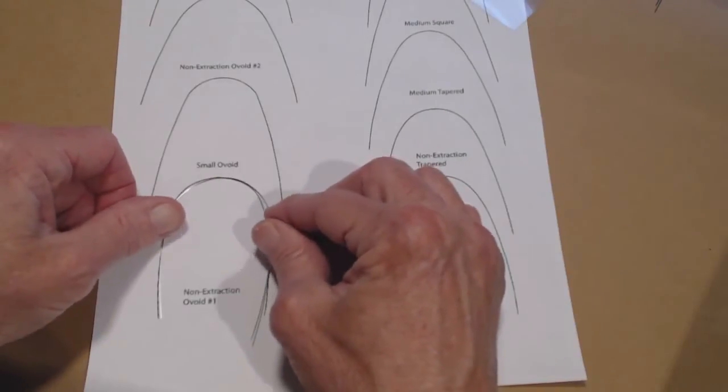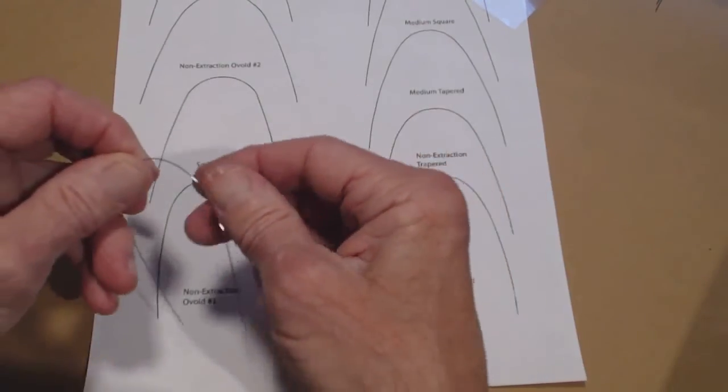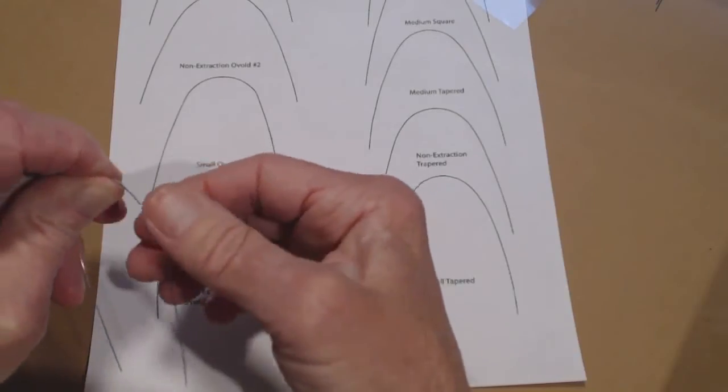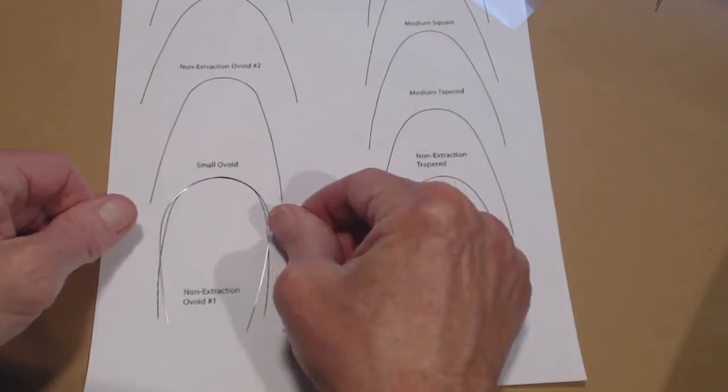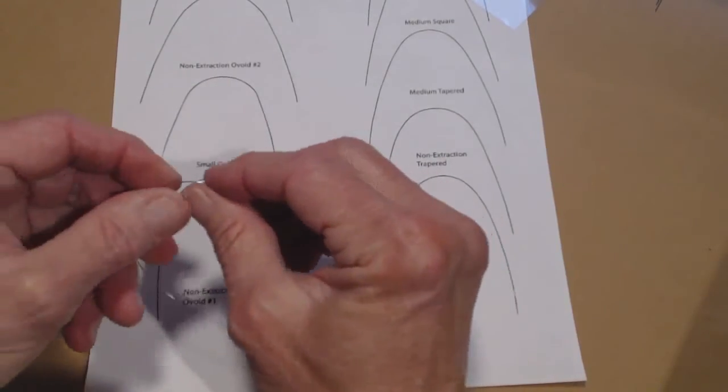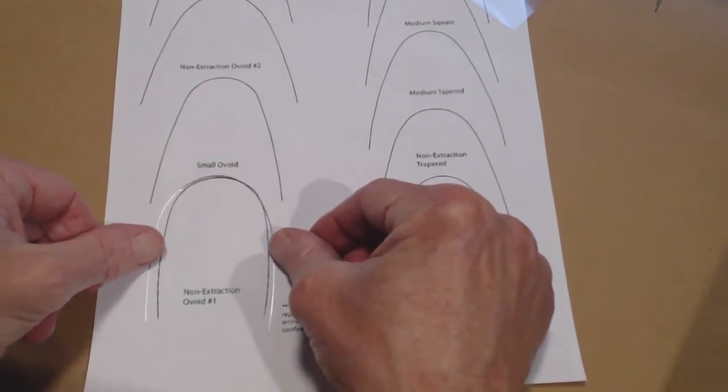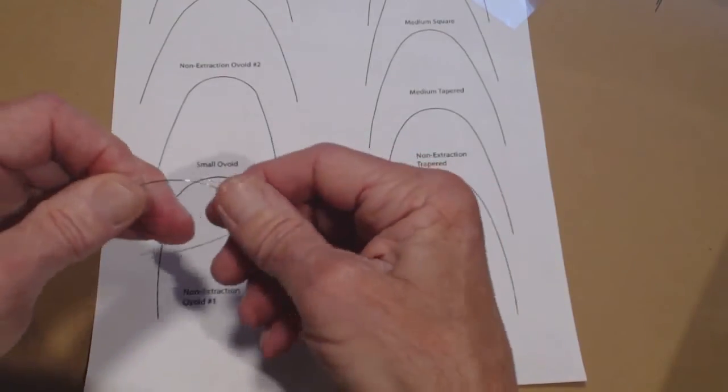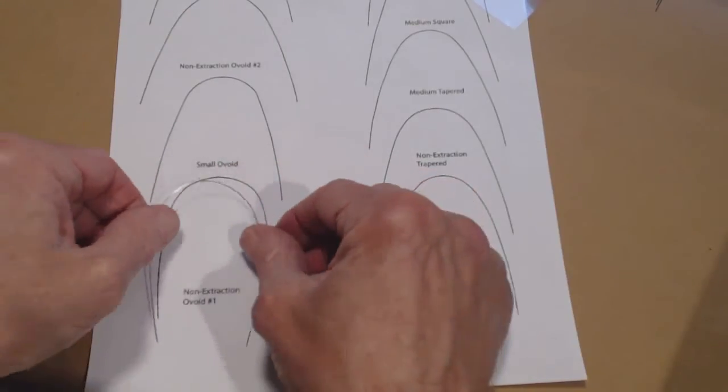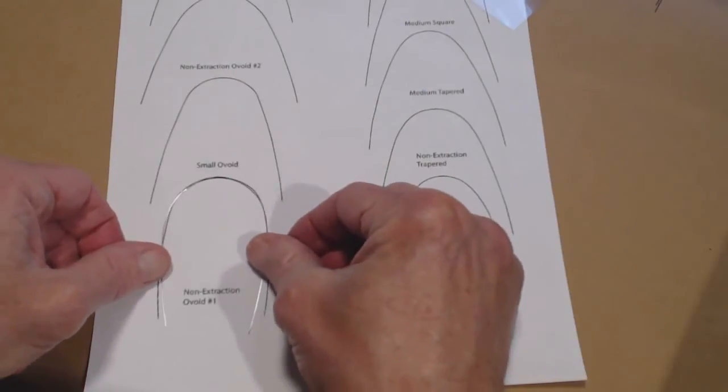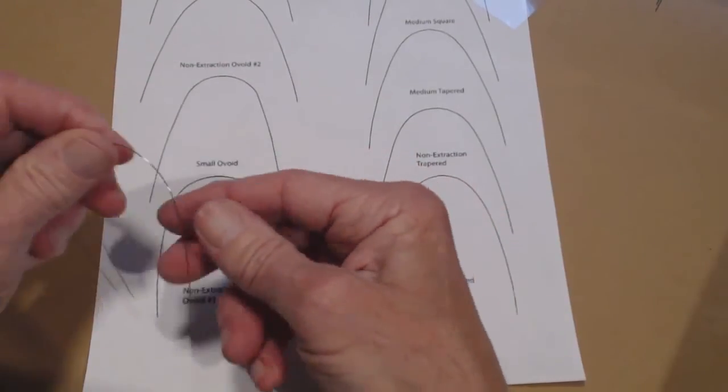Let's see how we did. And it looks pretty close. We need to tighten up patient right side just a little bit more. And then that was too much. So we just have to take a little of that out. And I have to put some back. There you go. And you can see that it is quite close.